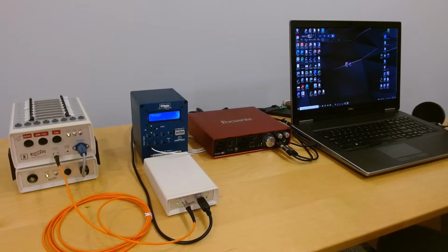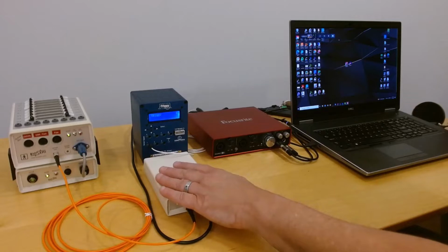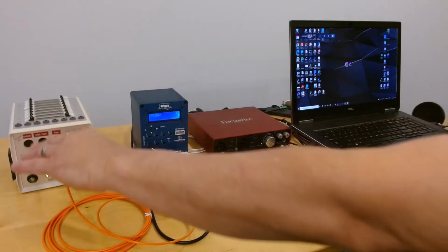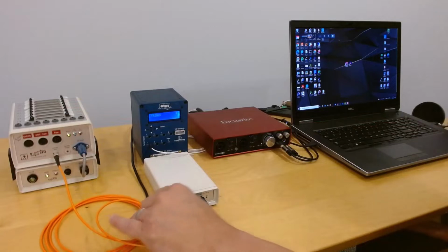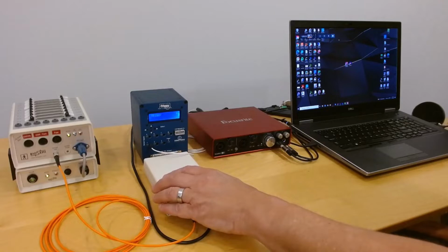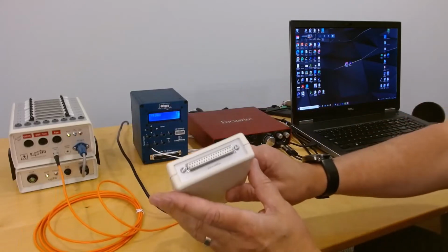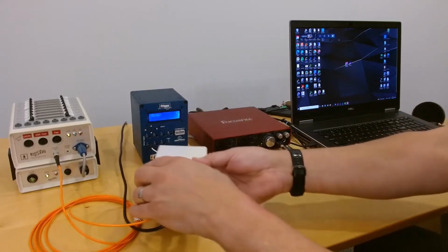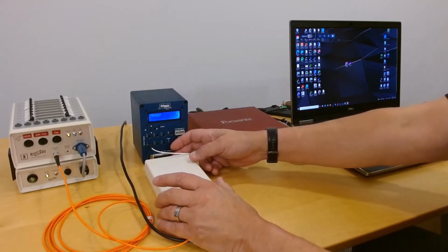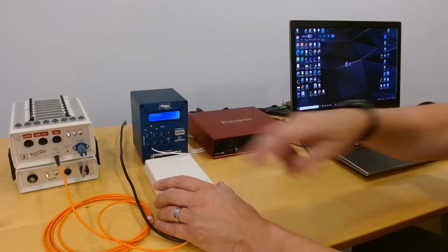In this example, we'll use the Biosemi ActiveTwo system. So you'll see here that we have a Biosemi USB interface. This is the AD box, so the data come out of the AD box via fiber optic cable into the optical receiver along with the clock. The clock drives the sampling of the trigger port, which is on the back of this device here. And what we're going to do is connect that trigger port to the 16-bit TTL output from Triggy.